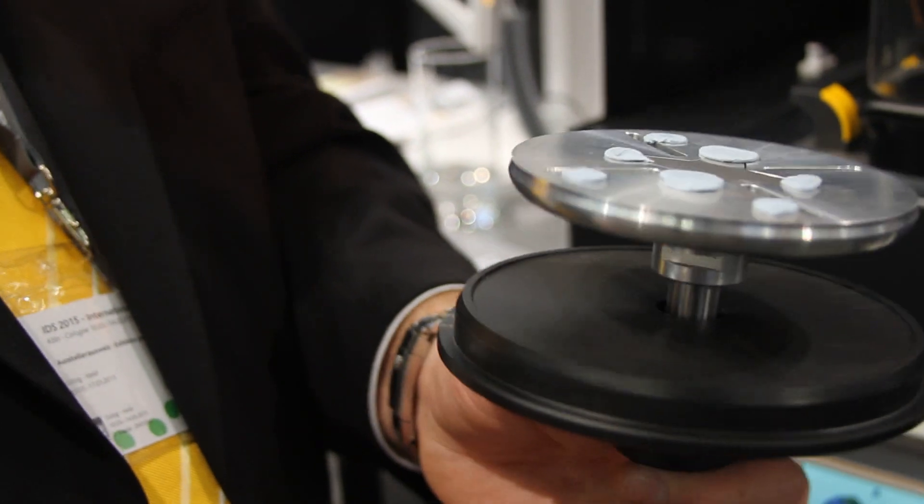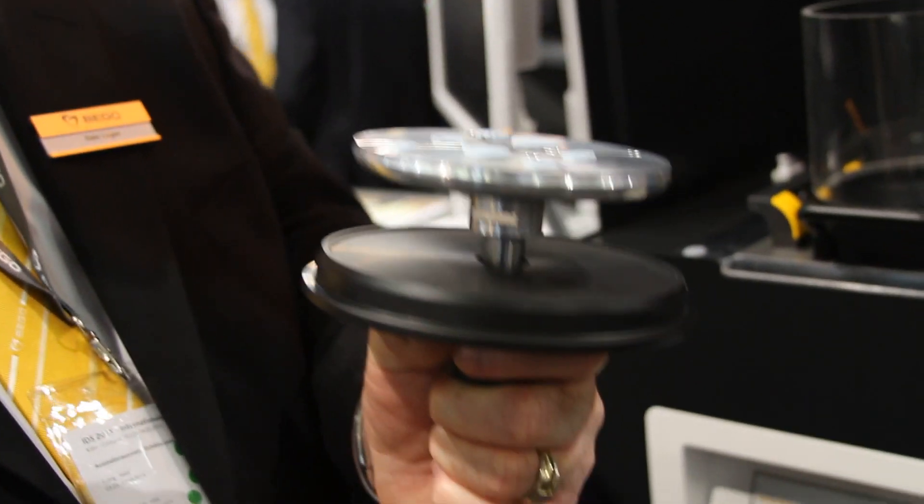You can do surgical splints, orthodontic splints, dentures, bases, as well as models, partial dentures, PMMMAs, and crown and bridge copings. There's another added feature here you won't see.